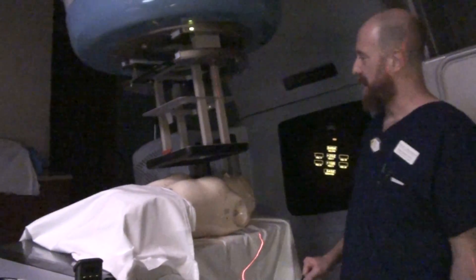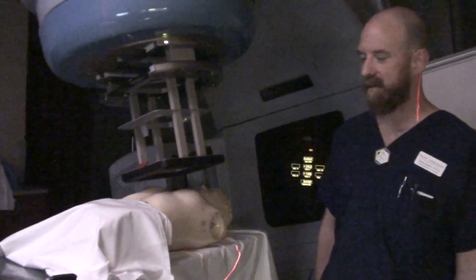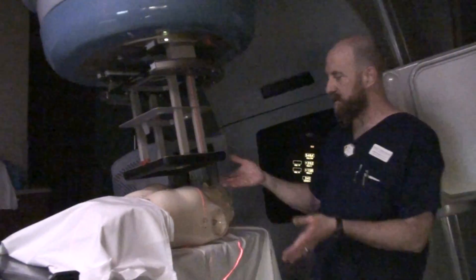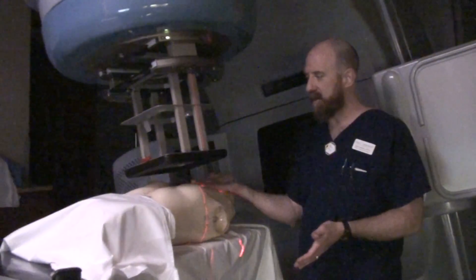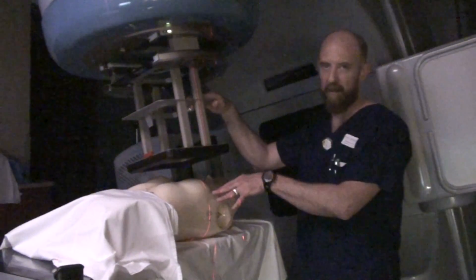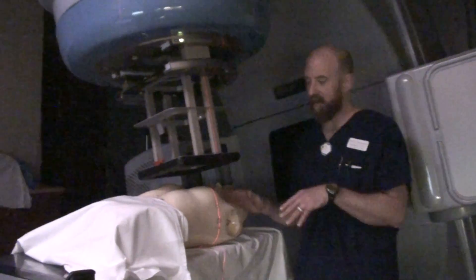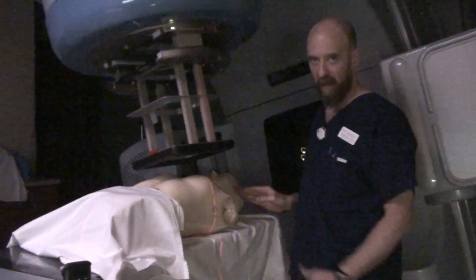That's not a good thing. It will destroy the confidence your patient has in you that you're not going to run into her with this piece of equipment. So, extended distance allows you the room it takes to clear your patient. The first thing you want to think about when you have an electron cone versus a human being is safety — be as safe as possible and as accurate as possible. Extended distance is usually required because the cones are so big and the fields are so long.